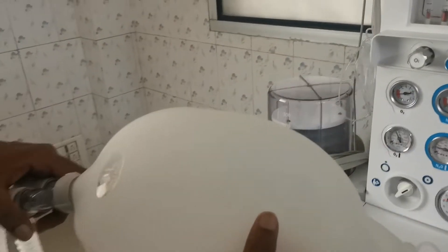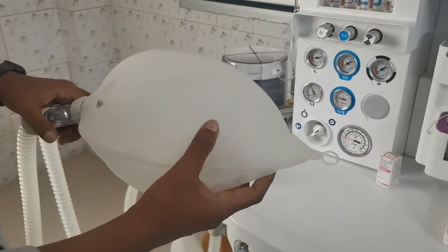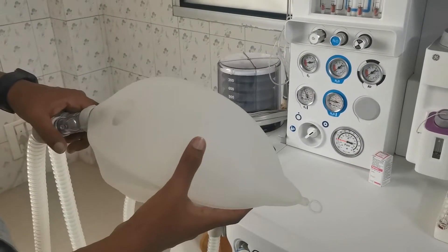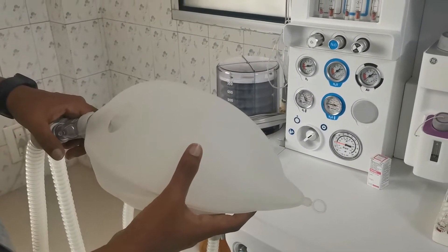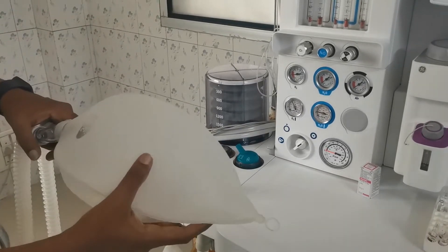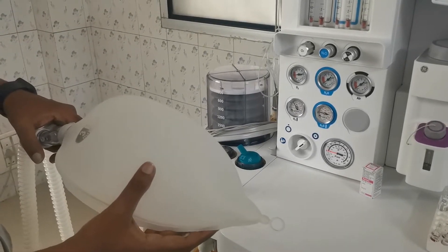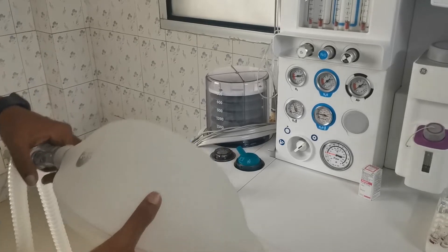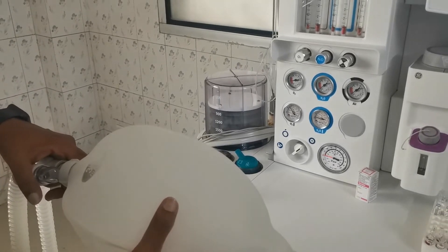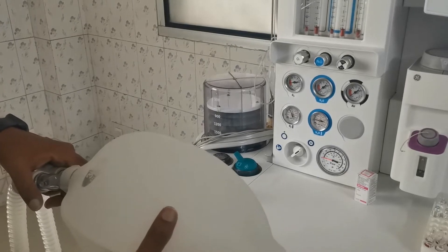I have connected it like this one here. You can see how it is given — you can see the ventilator is moving. So this is how ventilator mode works.